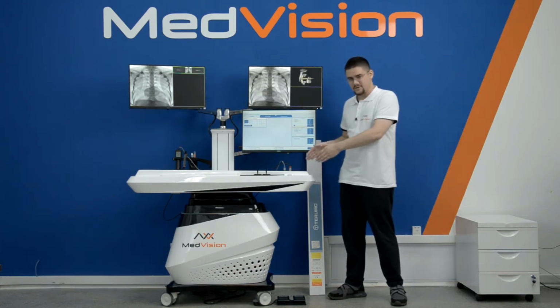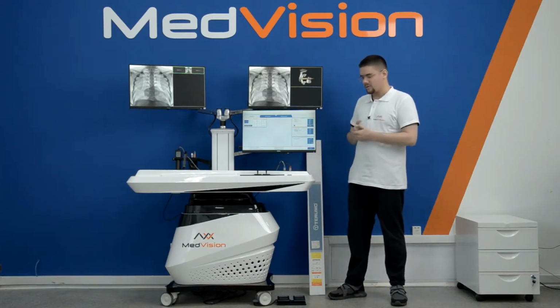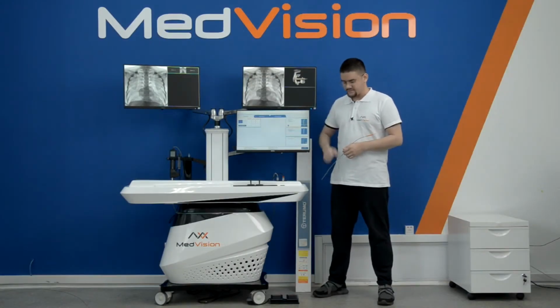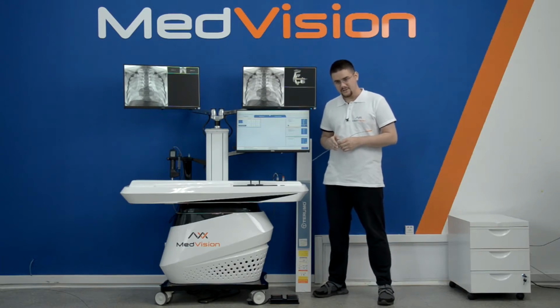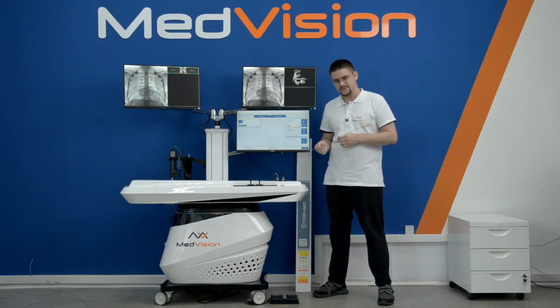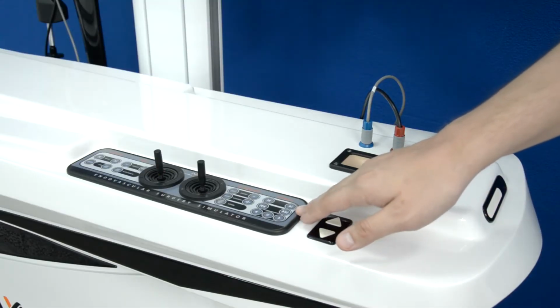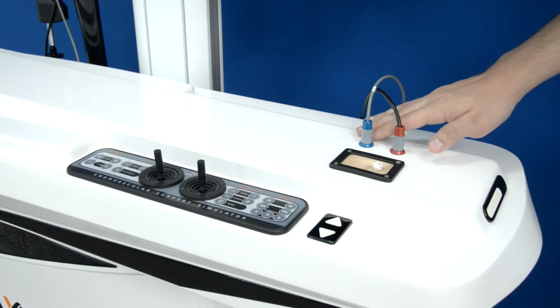All of the monitors have anti-glare coating and are installed on very flexible boom arms. Moving down to the central area of the simulator, here we have the central block, which is the one where all the physical controls are located. In the central area of the standard simulator, we have our central block where all the sensors and the feedback system is located, and the feedback system will stop completely the catheter that you're using, for example, if the picture on the screen dictates so, or it will introduce various levels of tension. In the central area, we have the C-arm control panel imitator, height adjustment buttons, the access port, the on and off switch, and color-coded connectors for your indiflator and syringe.